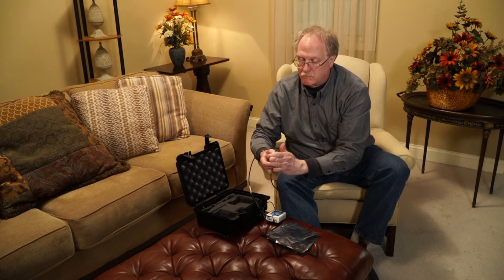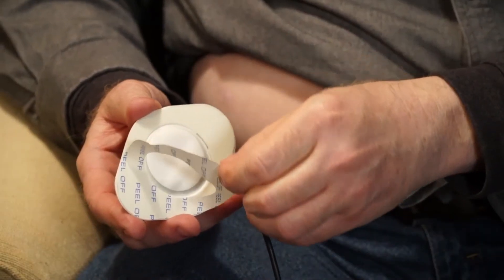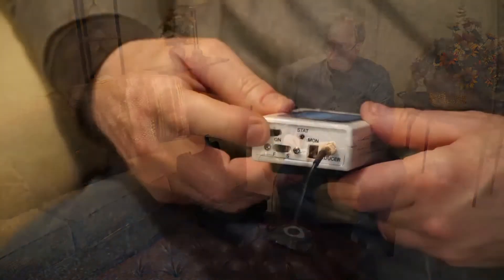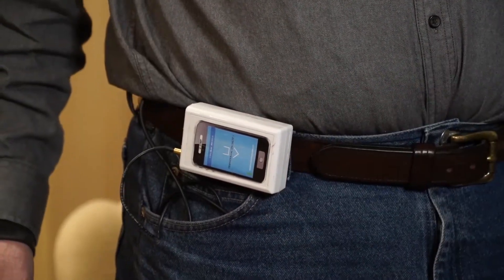The patch is replaceable, but the control unit has a shelf life of approximately two years, and the transducer coupler also about two years. Next you peel away the peel-away film, and simply stick it to the right side of the abdomen, input your starting glucose numbers, and you press enter. That is then placed on your belt, and begins to run its basal program.